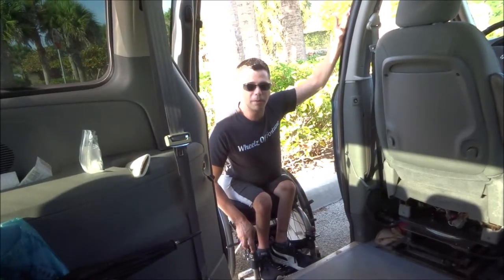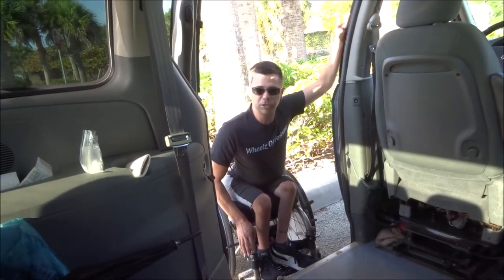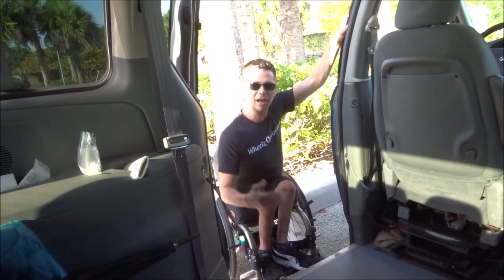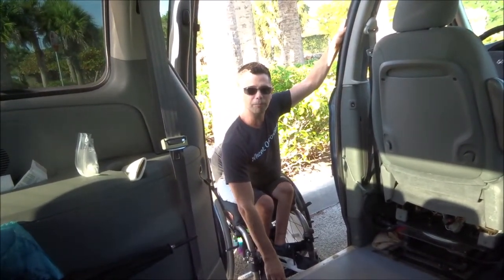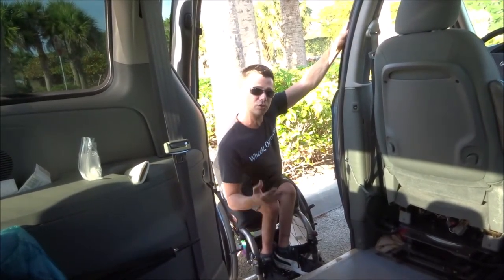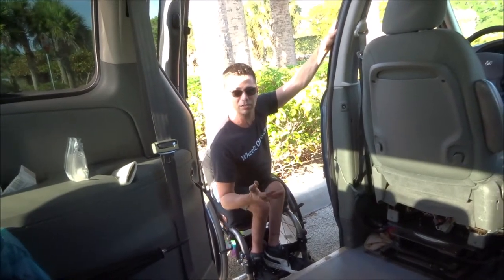You might not be able to do this. Maybe you will. It depends on the size of your wheelchair — is it electric? Is it manual? Upper body strength, a lot of different factors. But this video is basically just to give an idea of maybe there's something you haven't thought of that you could do if you are in a situation such as this. So here we go.